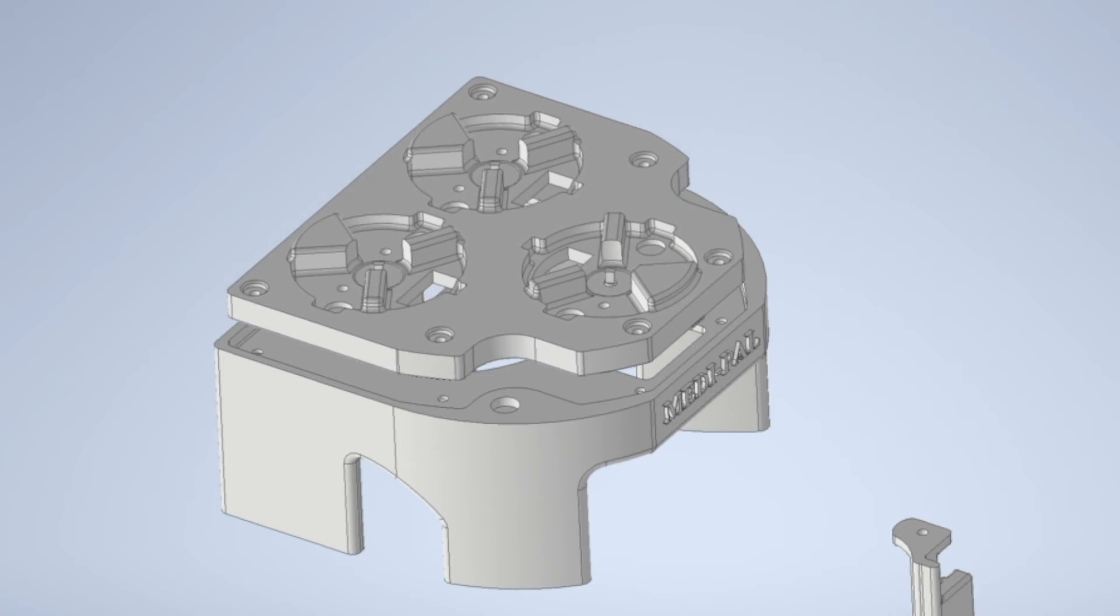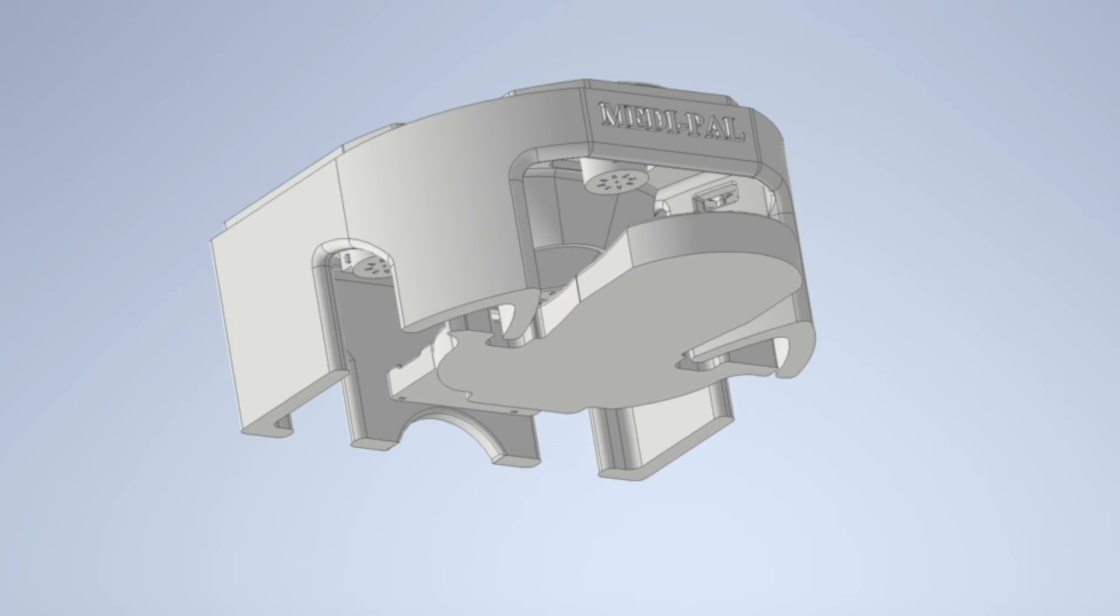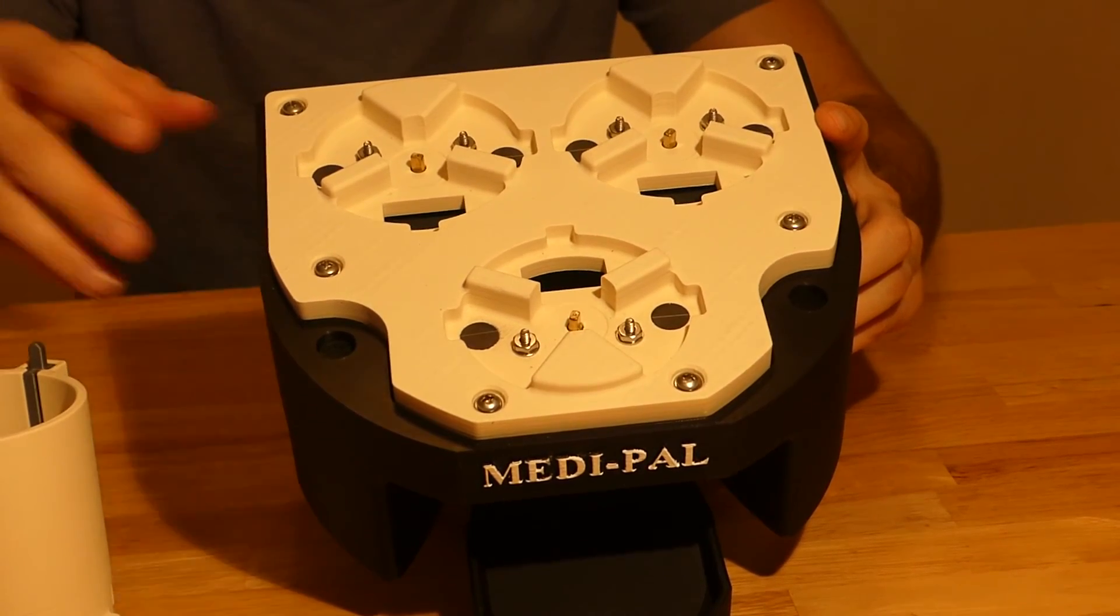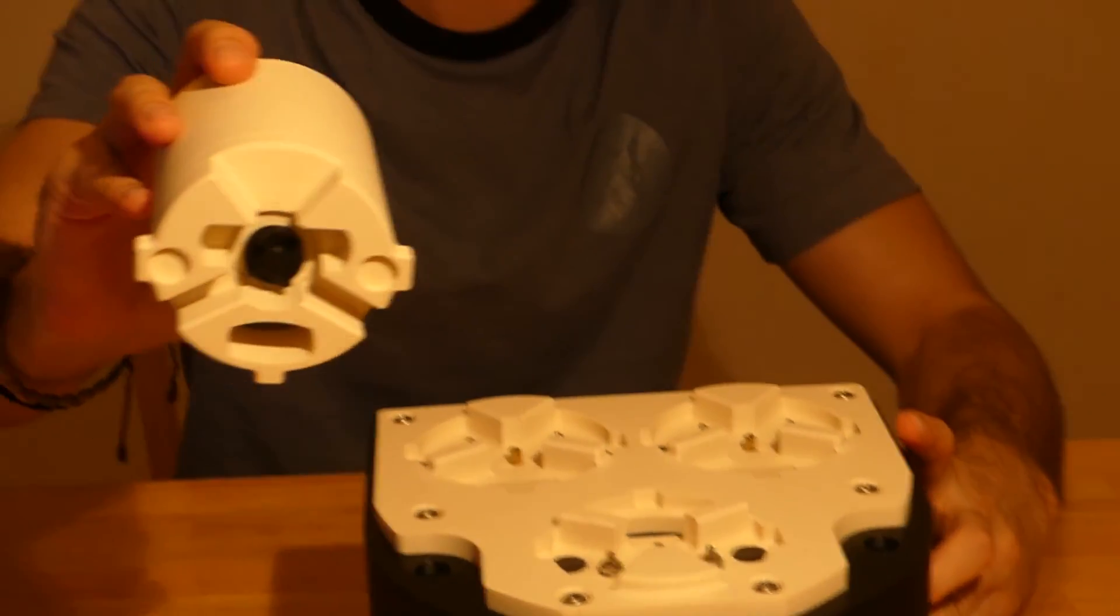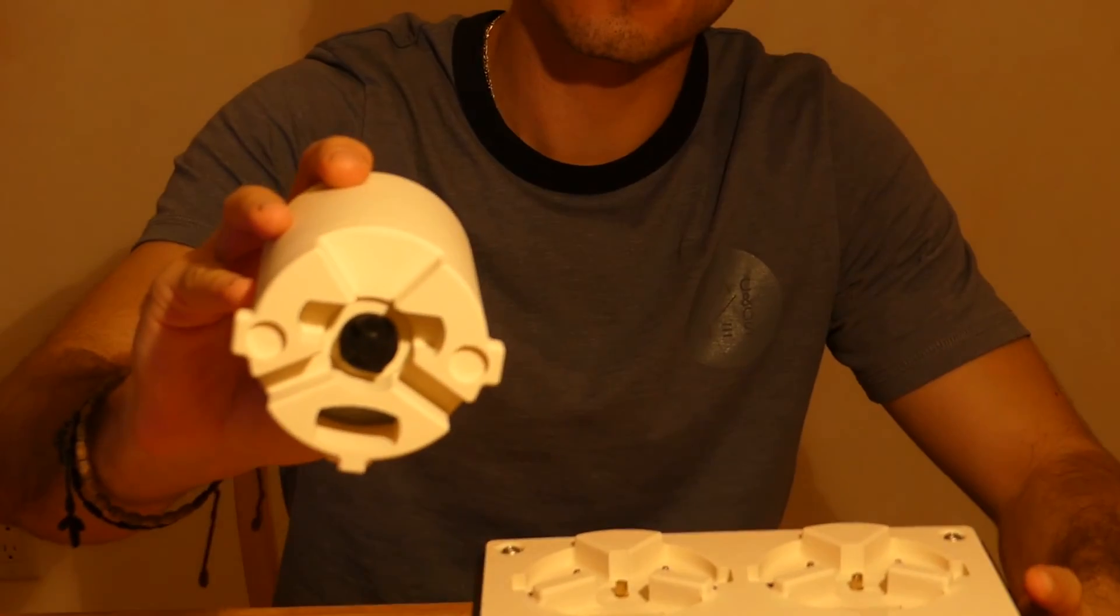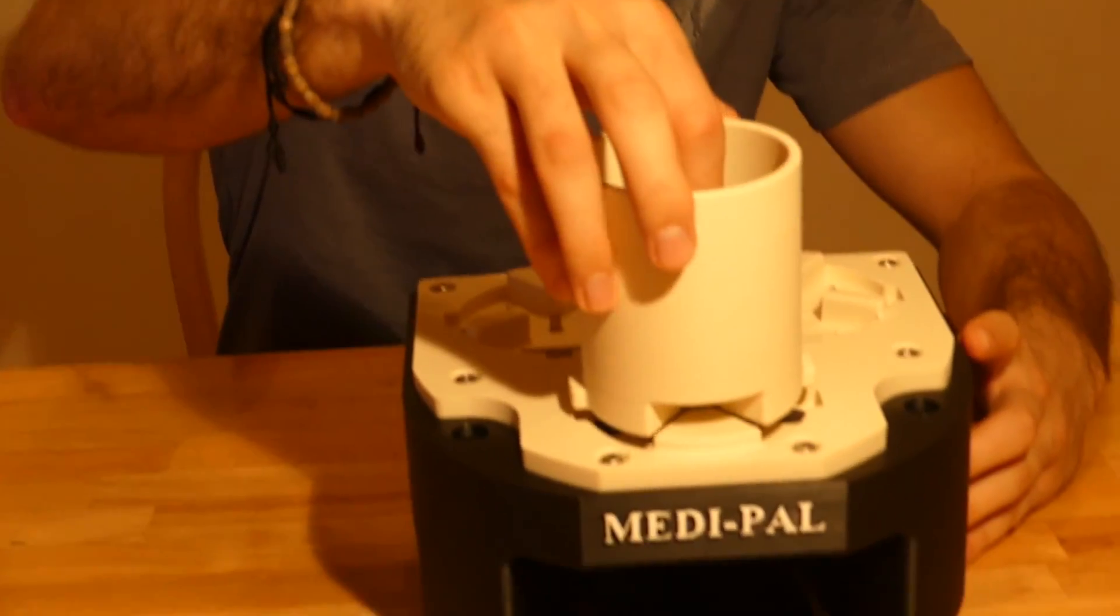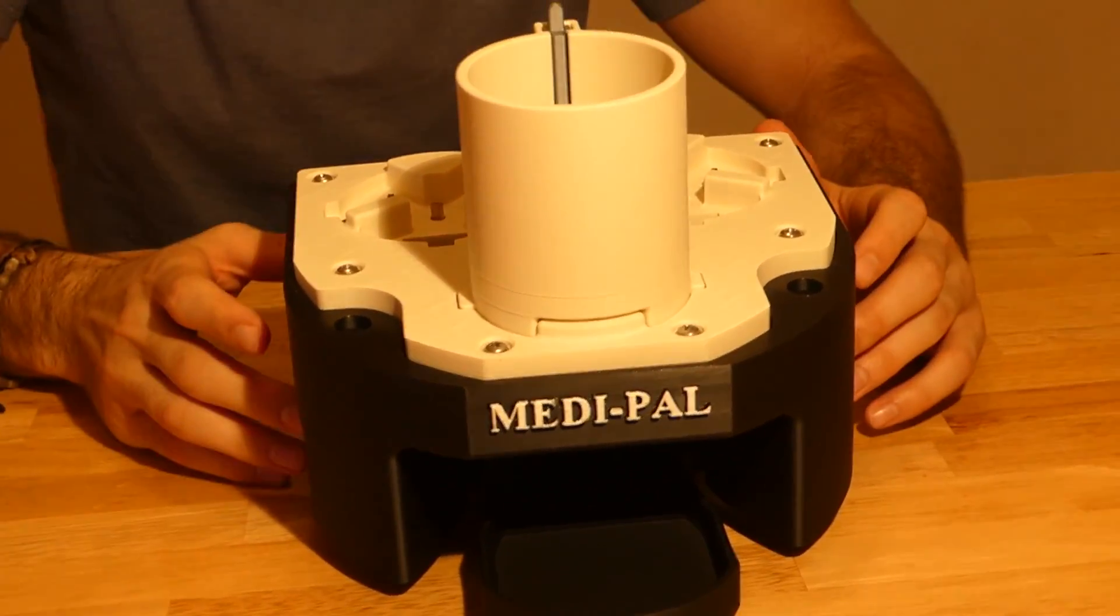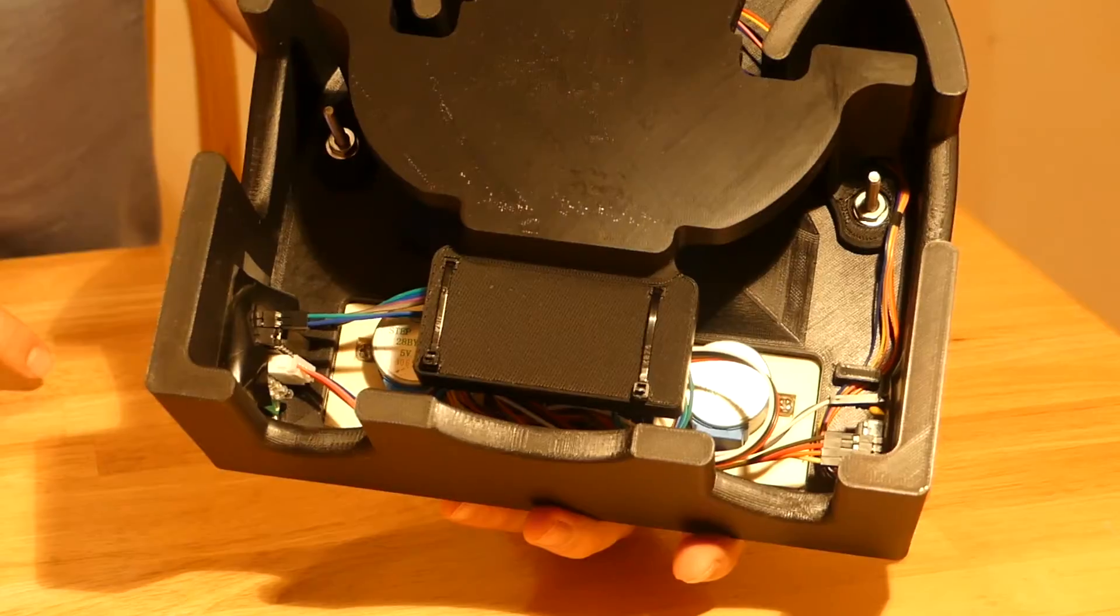The three pieces are assembled and secured with nuts and bolts. The cylinder base has a unique design that matches the bottom of the cylinders to ensure that the cylinders are secured and in the correct orientation while the pills are being dispensed.